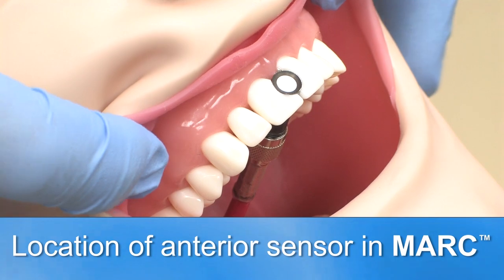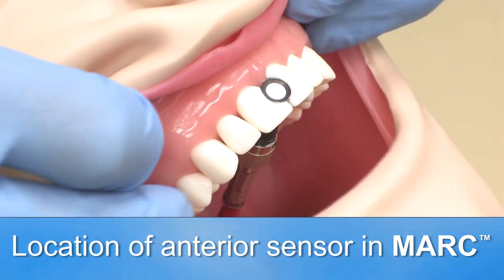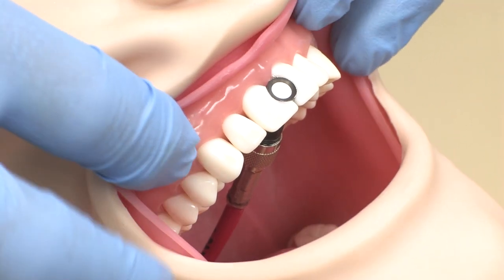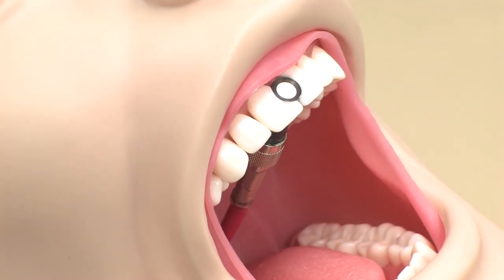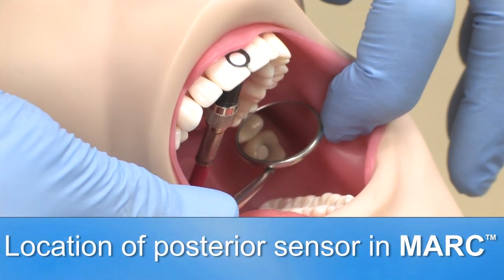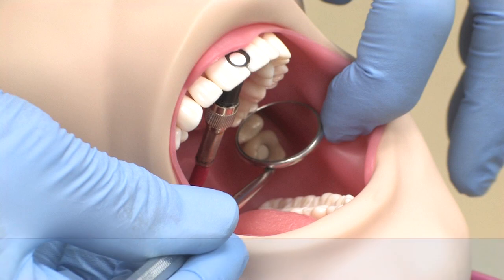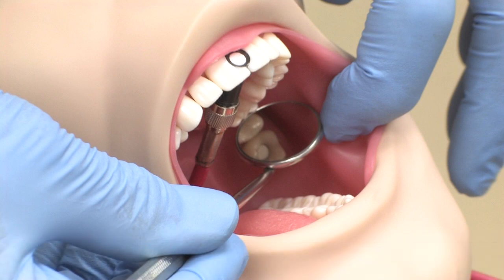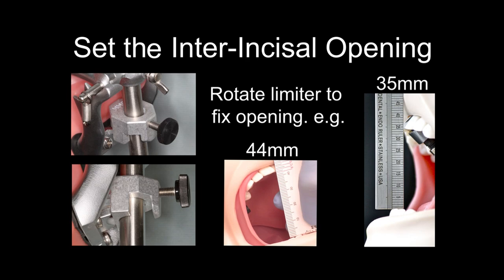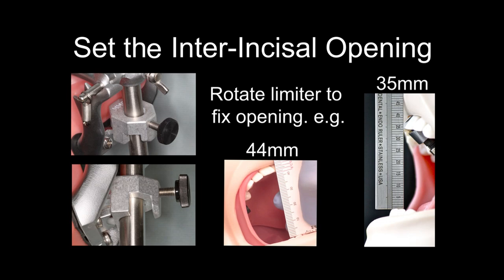Here we can see the location of the anterior sensor between the two upper central incisors. This sensor is 1 mm deep from the facial surface. Here we can see the location of the posterior sensor in Mark. This location is 4 mm deep from the cusp tip of the upper left second molar. The inter-incisal opening in Mark can be adjusted from a maximum of 46 mm through to 28 mm by rotating the limiter at the back of the stand.